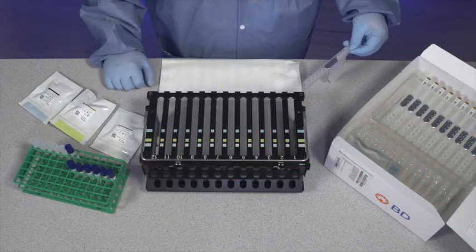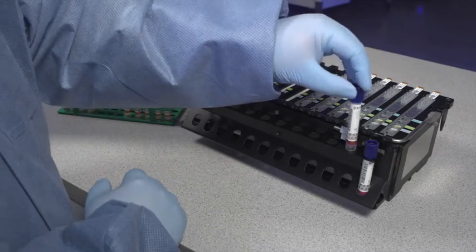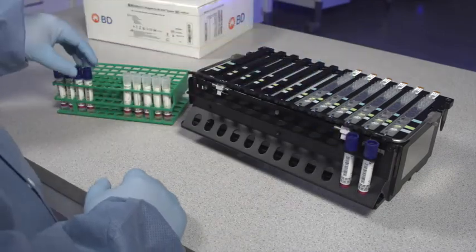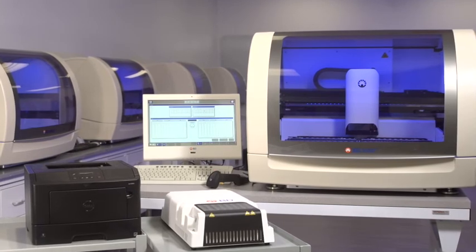Now proceed to the BD-MAX system operation section in the assay specific instructions for use to perform testing on the BD-MAX system.